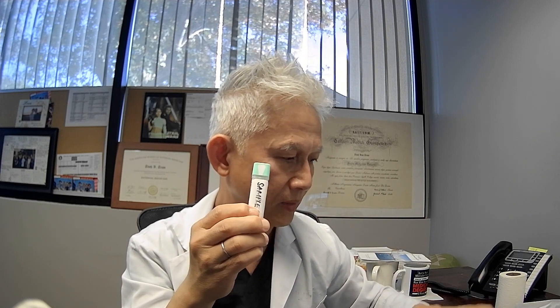Just like this — if your insurance requires you to use LabCorp, which is one of the different labs, this is a test kit from LabCorp. In this package, you will find your private information, label, everything. You don't have to do anything, and you don't have to remove anything.